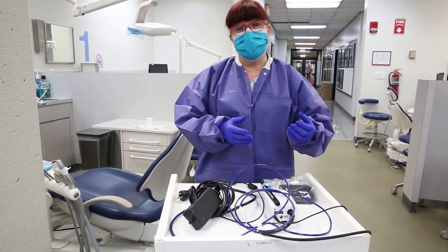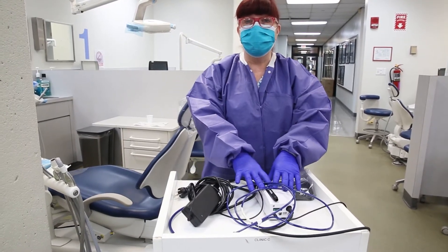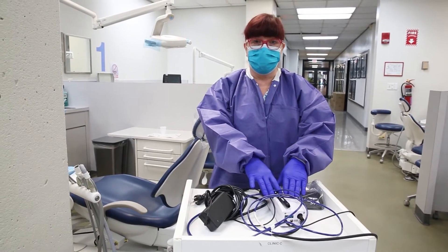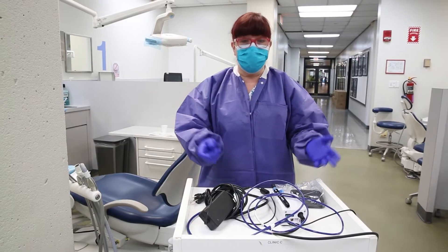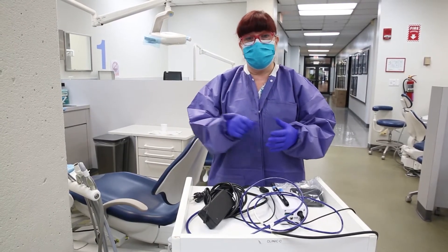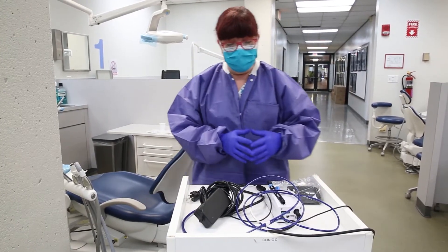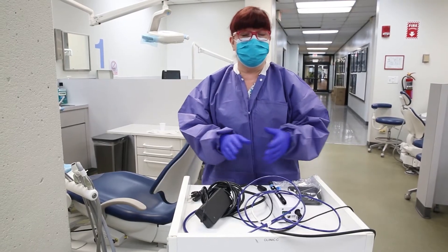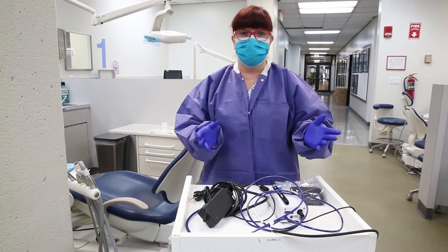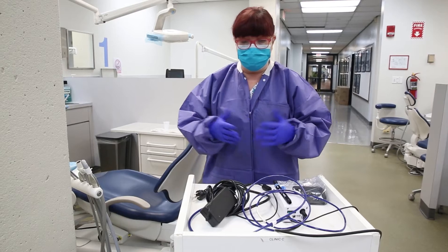If you are in clinic E, F, or G, you will probably need to check this out from the dispensary if you want to use a magnetostrictive ultrasonic scaler in your clinic. When you get it from the dispensary, it will come in a plastic box, and you sign it out in the book. Cavitron is a brand name made by Dentsply, but people tend to use the word Cavitron to apply to all ultrasonic scalers. I'll use the words Cavitron and ultrasonic scaler interchangeably.